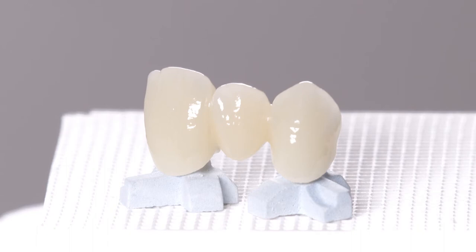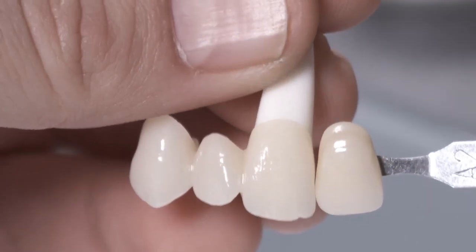The result? The desired shade colour has been matched and the restoration looks live with just one incisal material and some stain.